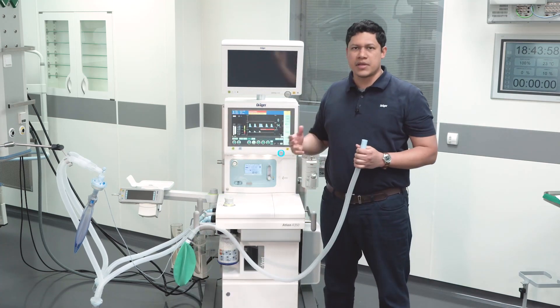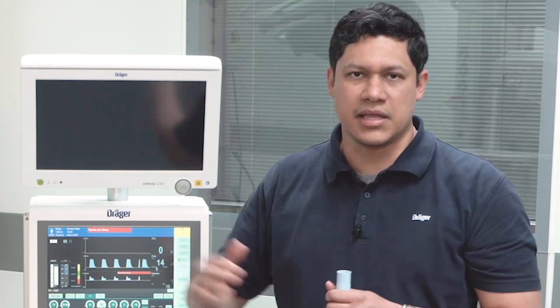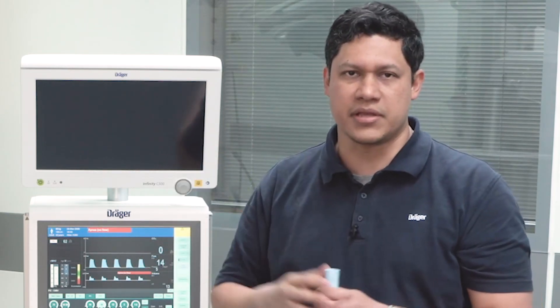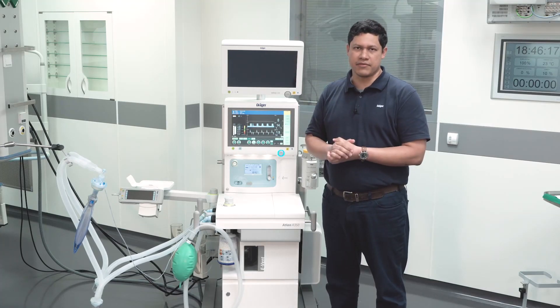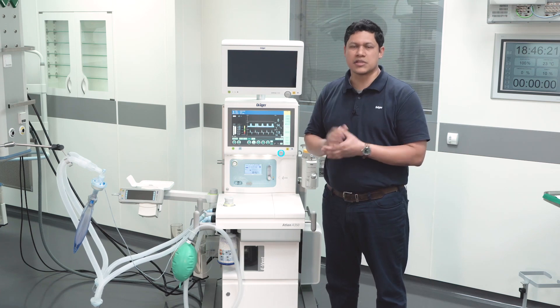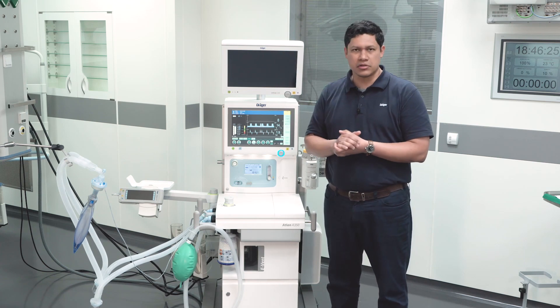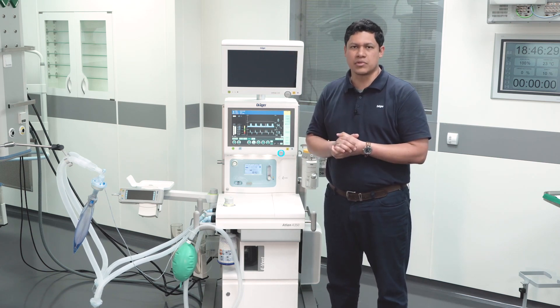Detaching the manual breathing bag will allow ambient air to be drawn into the system. Keep in mind that the fraction of inspired oxygen will then be between the set level of oxygen and 21% from the ambient air. Always stay in the vicinity of the anesthesia device. Remember, the alarm management design was meant for the operating theater.